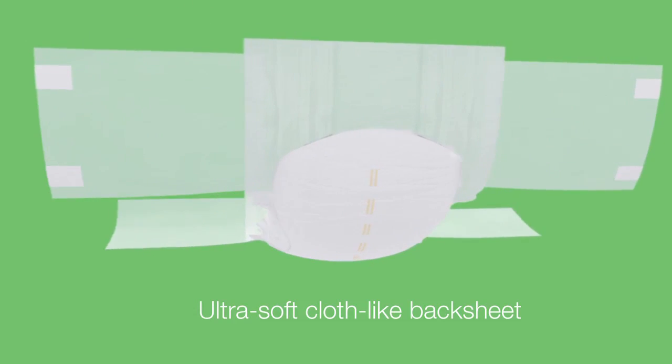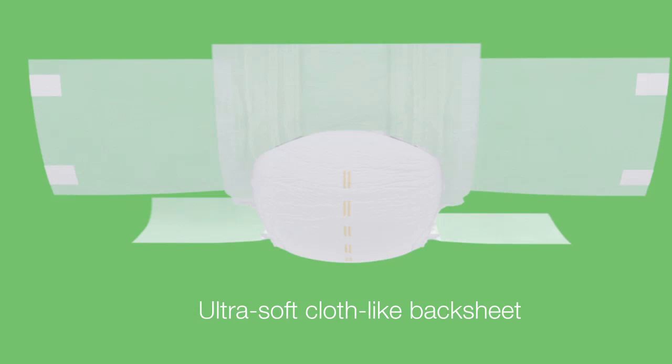The ultra-soft, non-woven backsheet provides the comfort and feel of clothing.